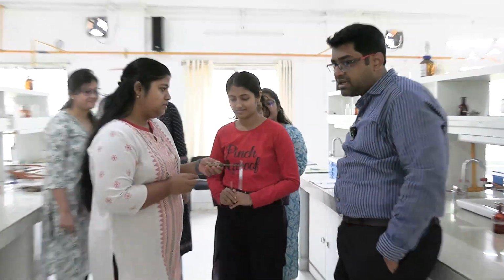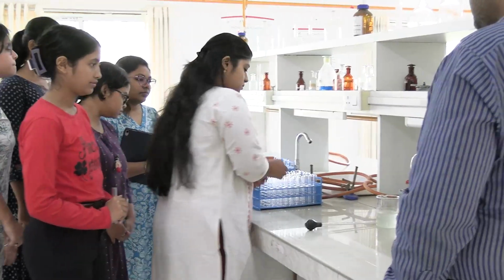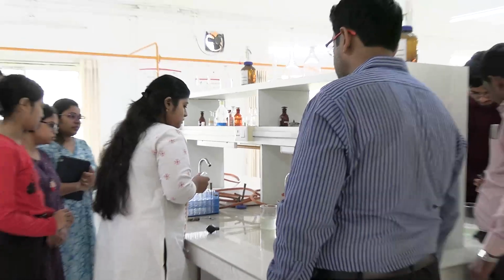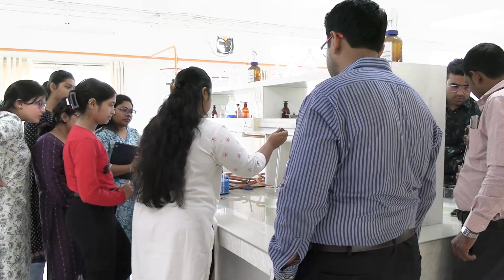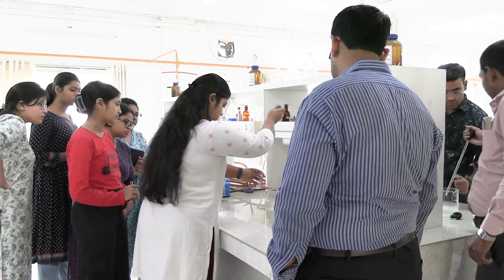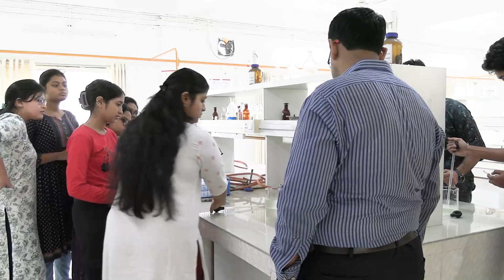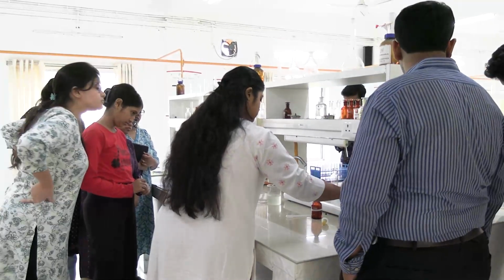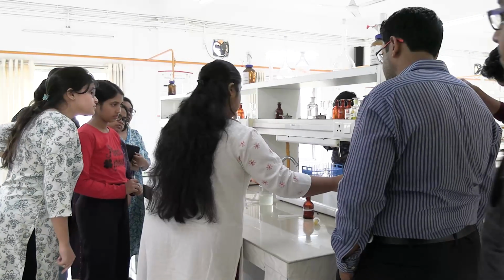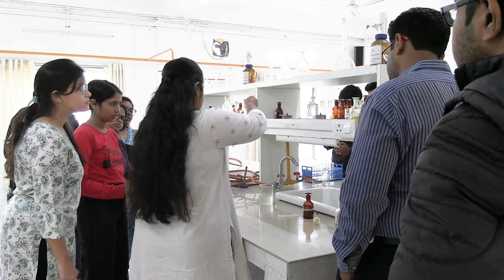Okay? Happy? Very good. Now please proceed with the sulfosalicylic acid part. In this sample, we will add 5 drops of sulfosalicylic acid.